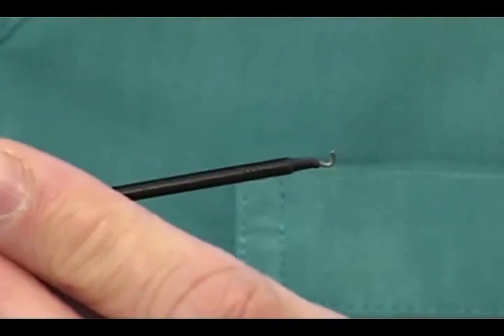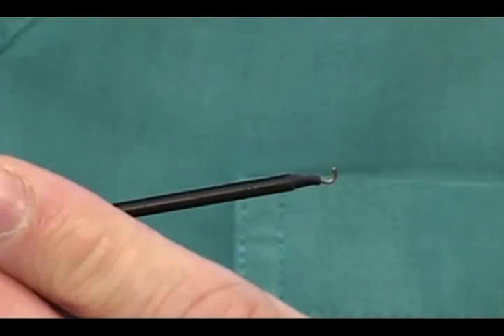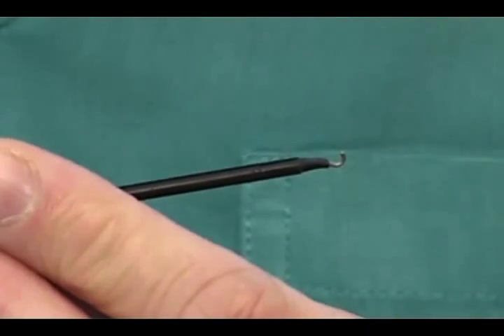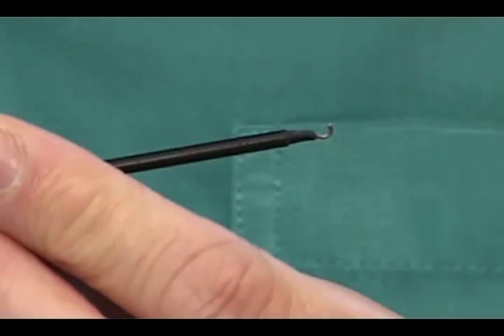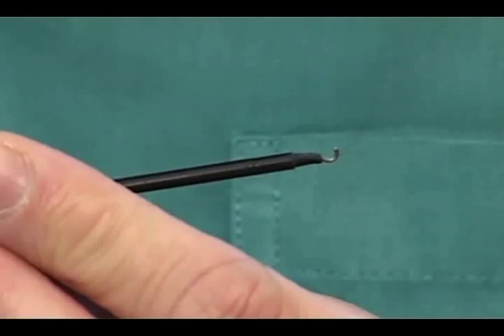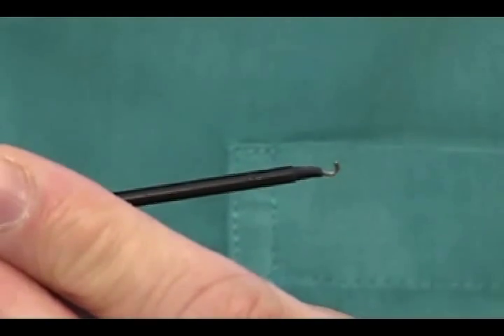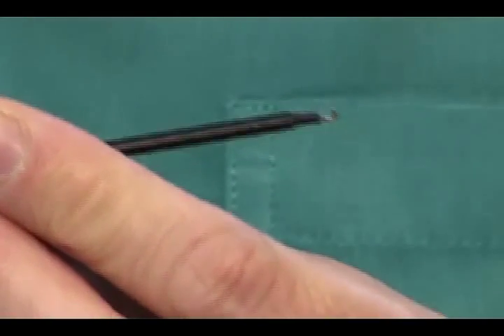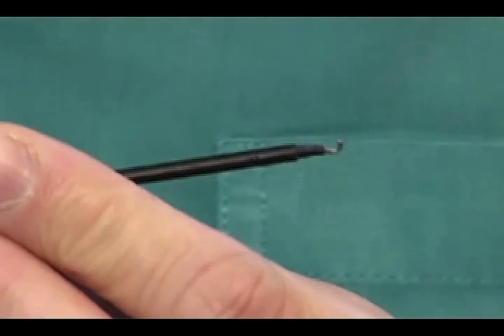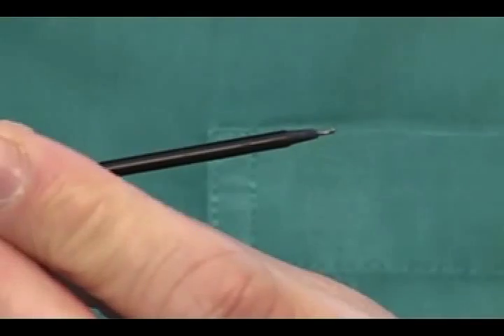This 3mm hook dissector is a wonderful piece of instrument. I use it for a lot of fine dissection, particularly when going through tissues with a lot of fine blood vessels, as it can very accurately coagulate and cut at the same time. It has a very fine hooked tip, which can be used either as a diathermic needle or as a hook dissector.